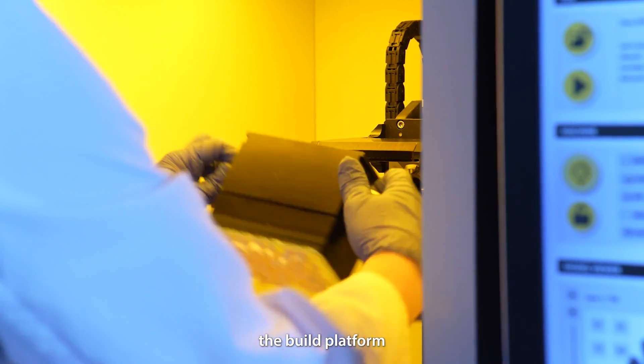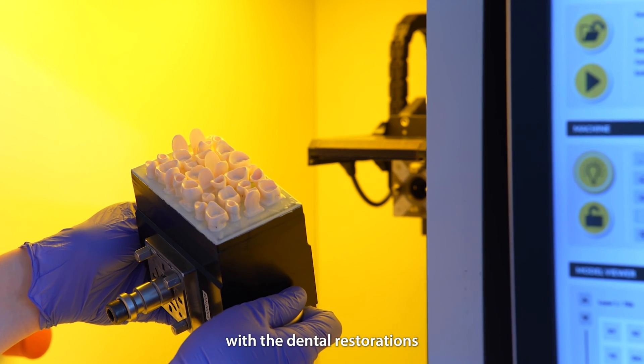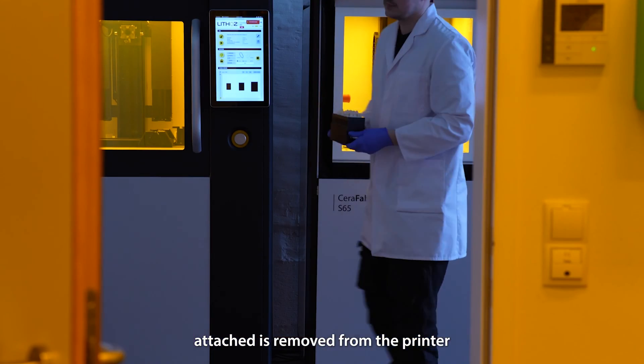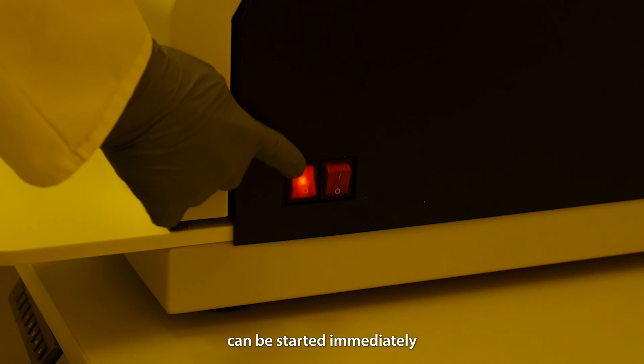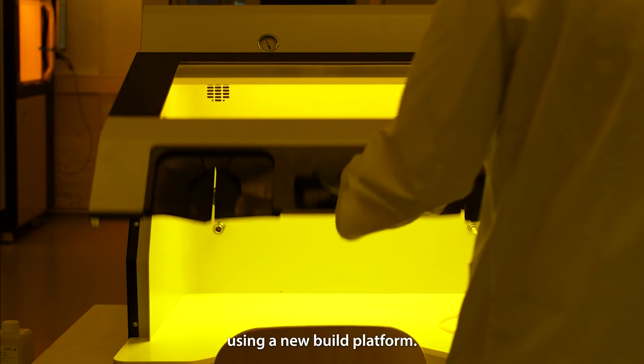When the print is finished, the build platform with the dental restorations attached is removed from the printer and the next print can be started immediately using a new build platform.